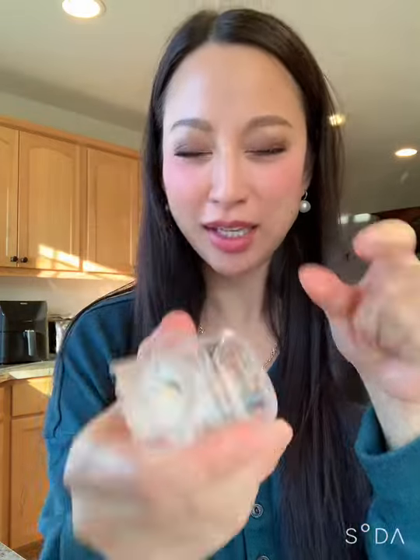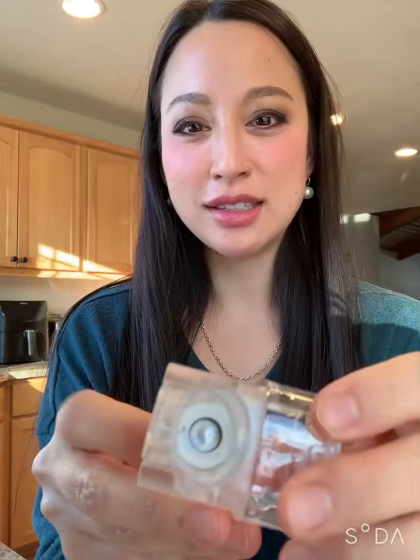So you remember when I was cleaning with it? Don't put anything inside here to clean it — don't put a q-tip or anything in there. Nebulizers in general are either mesh or compressor. The compressor ones make a lot of noise.